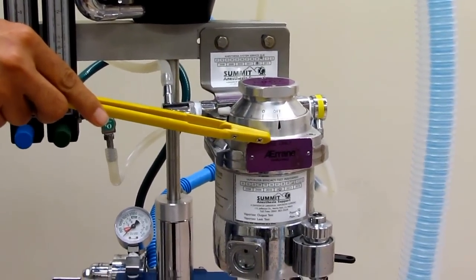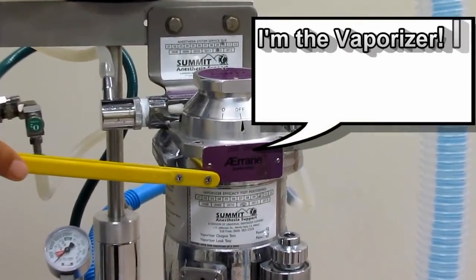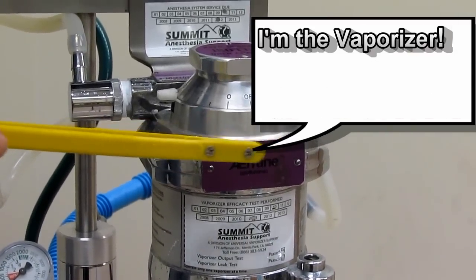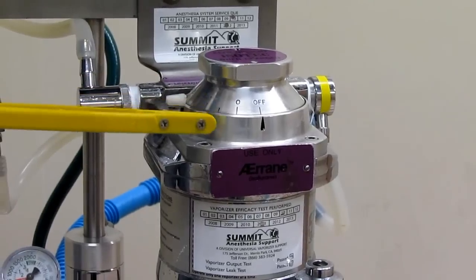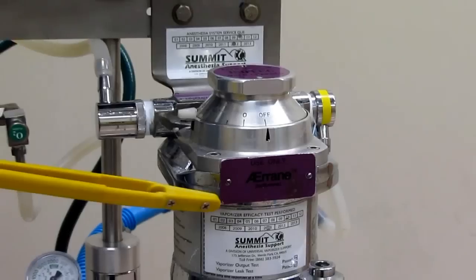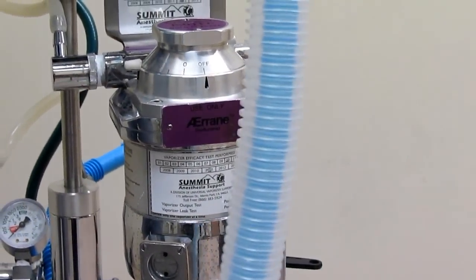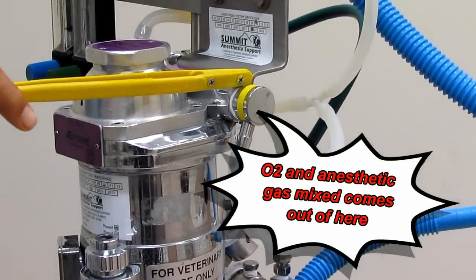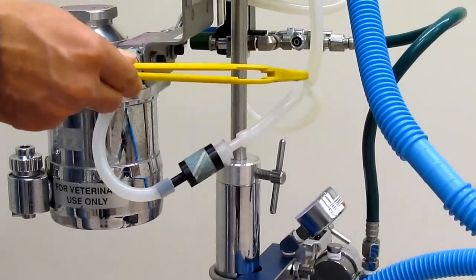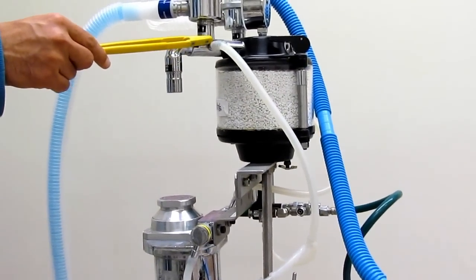Now here we have an isoflurane vaporizer, which can only be used with isoflurane gas. Each vaporizer is specific to a certain type of gas. We'll talk about the vaporizer later, but it is important that we cannot mix and match vaporizers with gases. This is only a vaporizer for isoflurane. Oxygen will pick up isoflurane within this vaporizer, and then it will exit through the vaporizer outlet. This is where fresh O2 gas and mixed anesthetic gas exits the vaporizer, which then comes up through this hose and enters the breathing circuit.